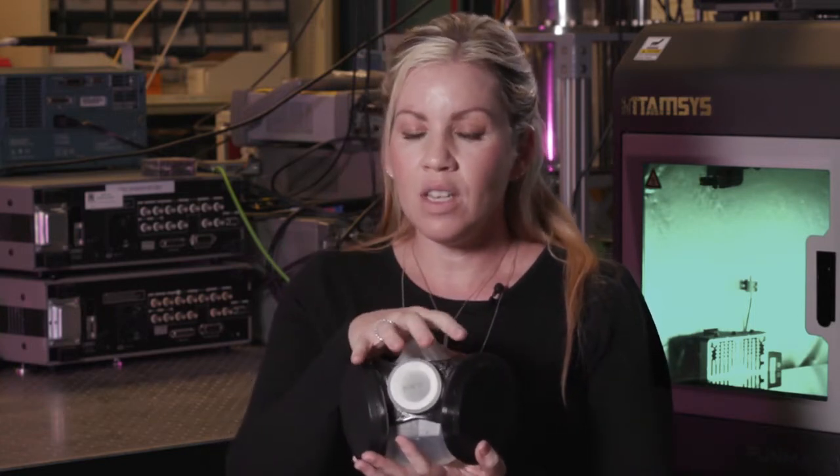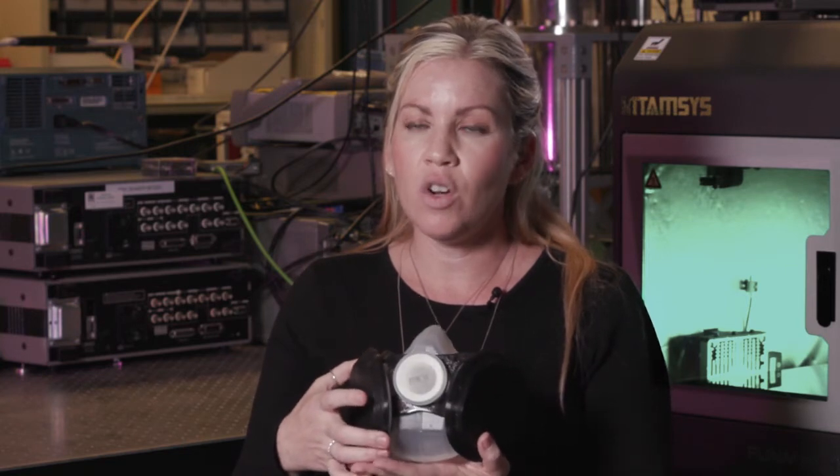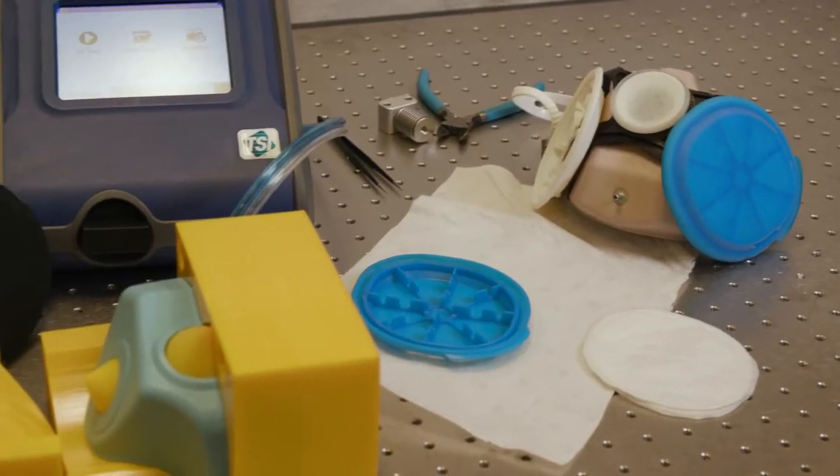We also have some features with the material of this mask. This material is generated in order to be disinfected at a high level and also sterilized.